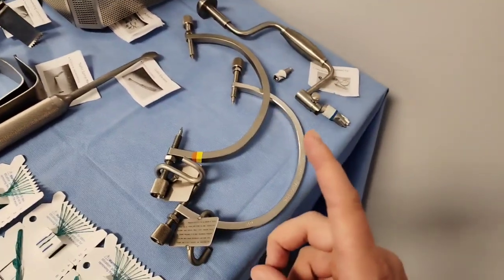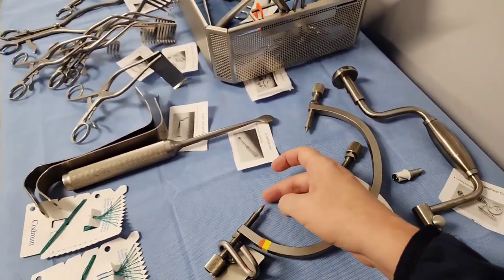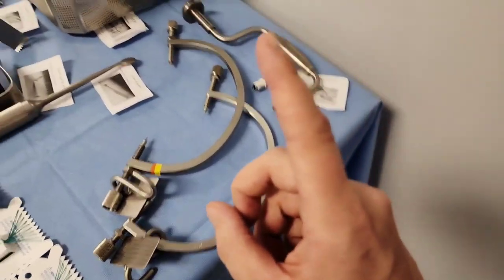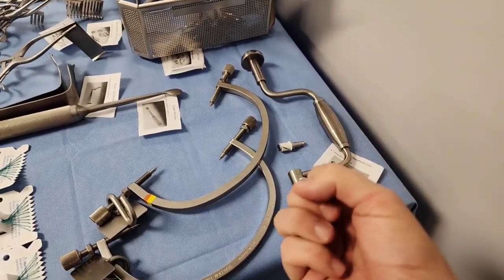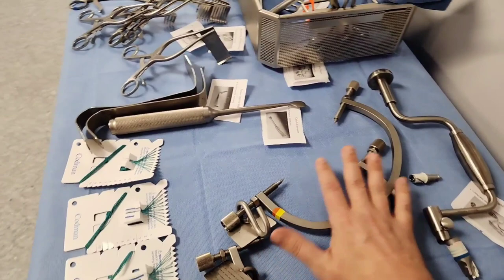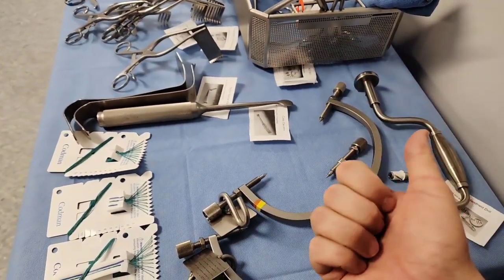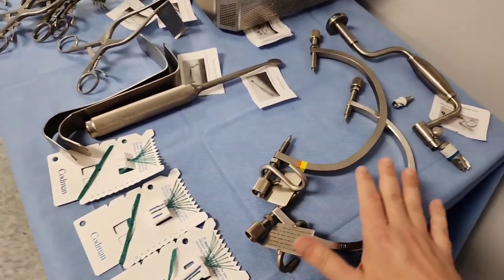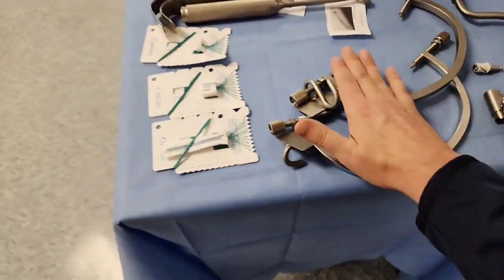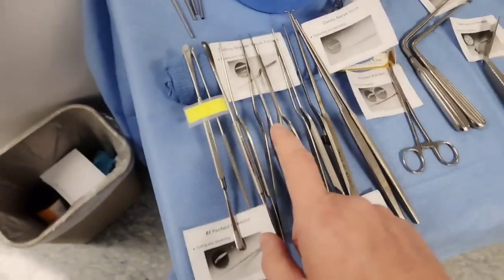There's also a horseshoe version of this Mayfield — it's more of a cushion and not so traumatic as the fixation pins. There's also something called a Gardner's tongs traction device, which uses a weighted pulley system. Go ahead and look that up. But the main fixation for the head during craniotomies would be the Mayfield positional device, the horseshoe, or Gardner's tongs.